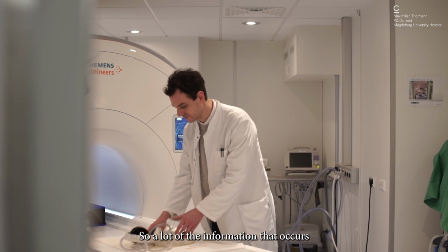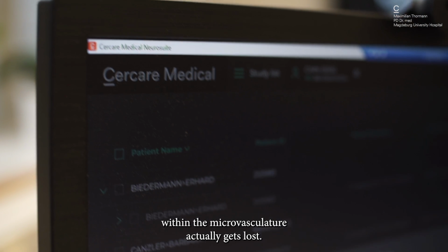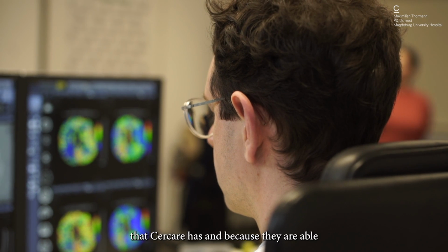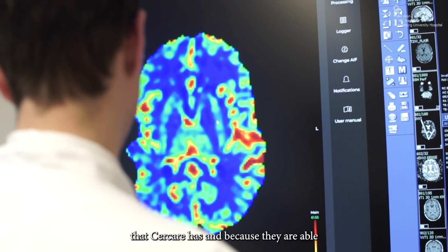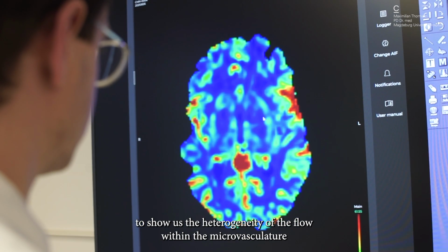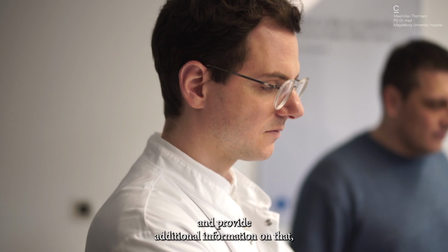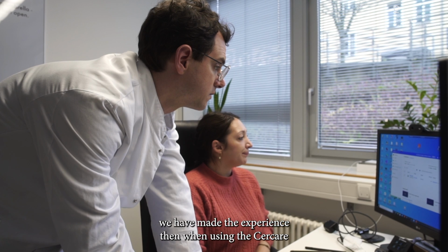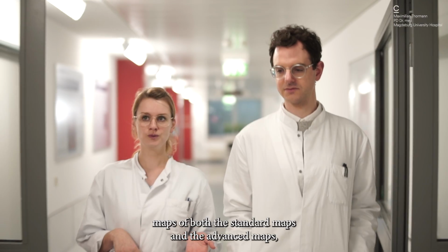So a lot of the information that occurs within the microvasculature actually gets lost. We were quite intrigued by the vascular model that Cercare has because they are able to show us the heterogeneity of the flow within the microvasculature and provide additional information on that. We have made the experience then when using the Cercare maps, so both the standard maps and the advanced maps.